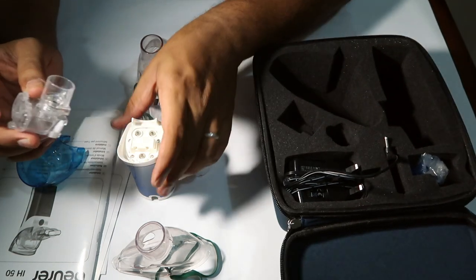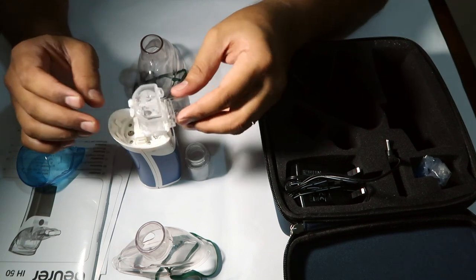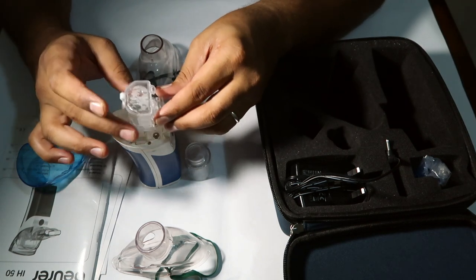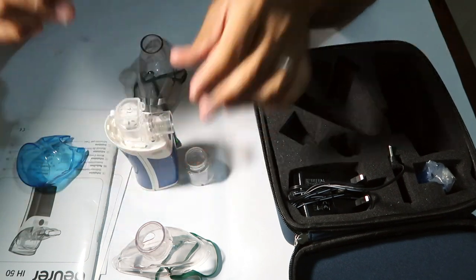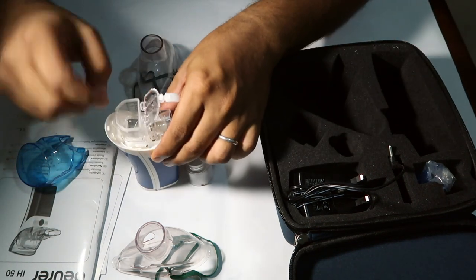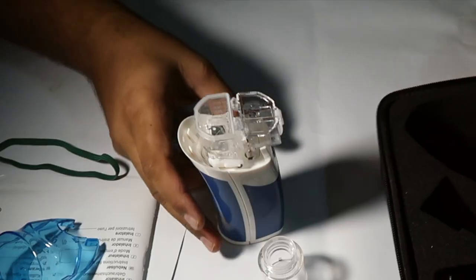I'm using saline water with this device to help it work. I'll press it and fill it with saline water, then close the saline cap.